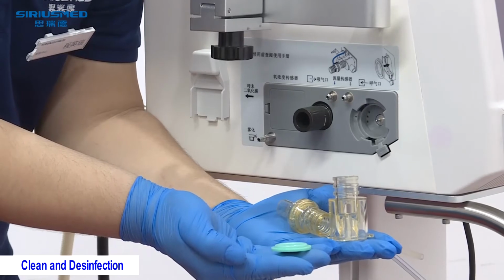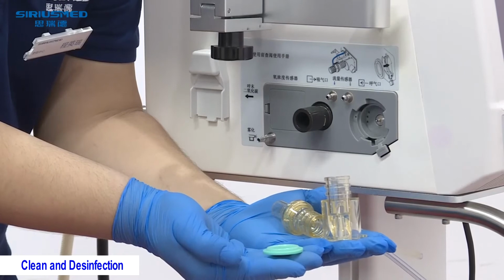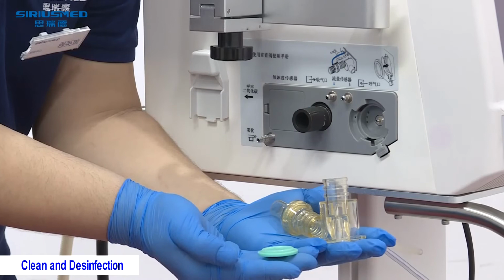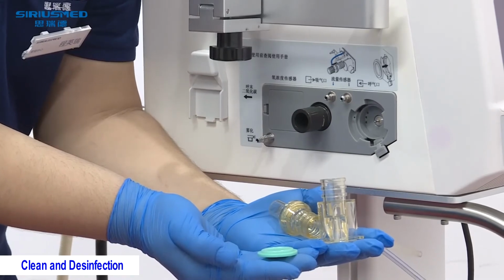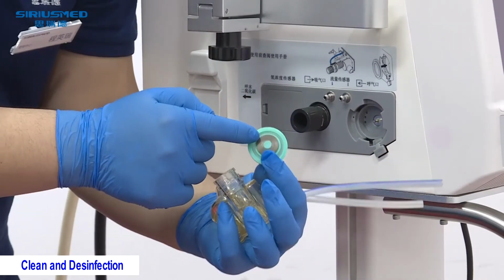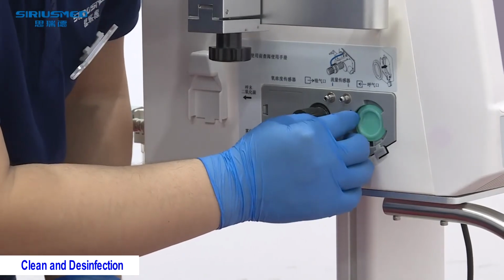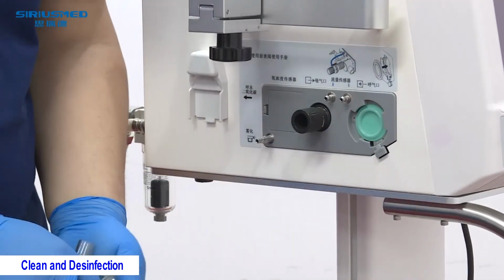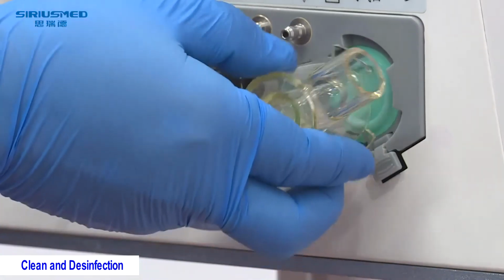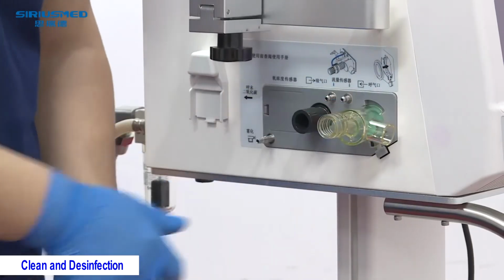Firstly, install the exhalation valve diaphragm. This diaphragm needs to be installed in this groove with the metal side inside, the metal side inside of the machine. You put it in and press the edge. And then we press this exhalation valve and turn it upwards.